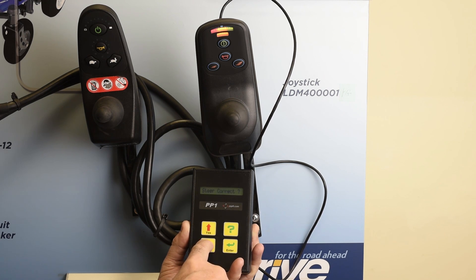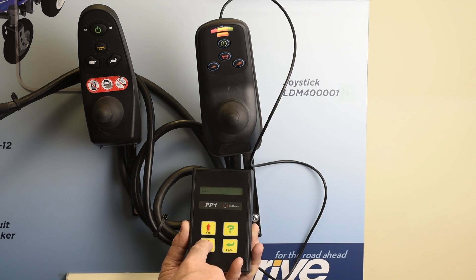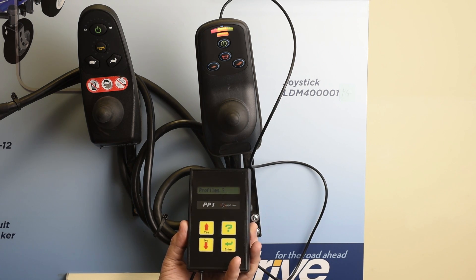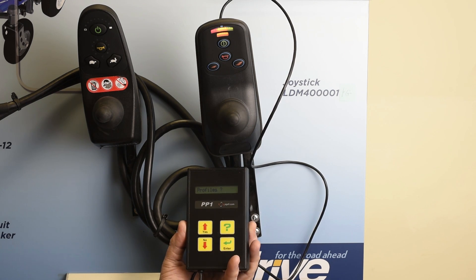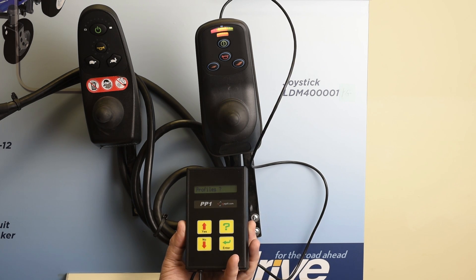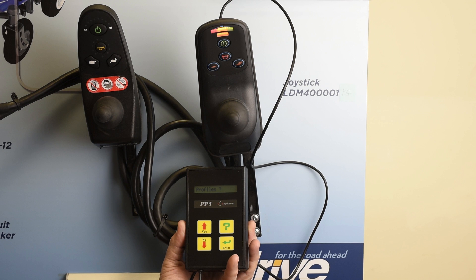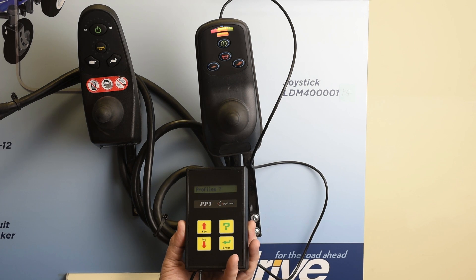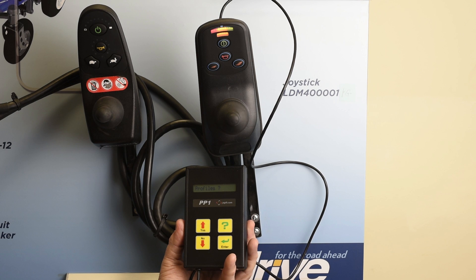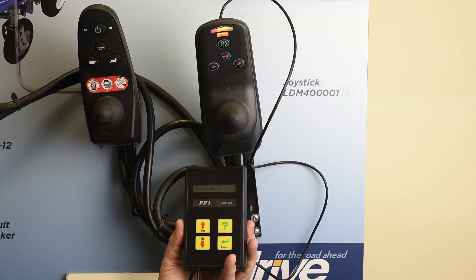The other settings right now are not important — we just wanted to slow this chair down. One thing to note: if you cut down the forward, reverse, or turning speeds and the chair starts to load down or the forks start to bind when turning from side to side, you increase the acceleration for that function, which essentially is the torque. It helps you overcome the resistance of the forks as you turn from side to side.